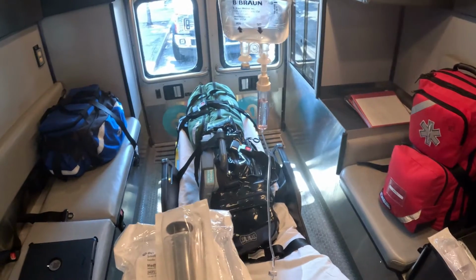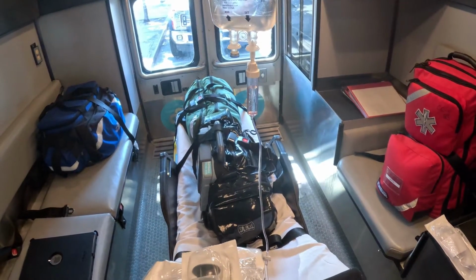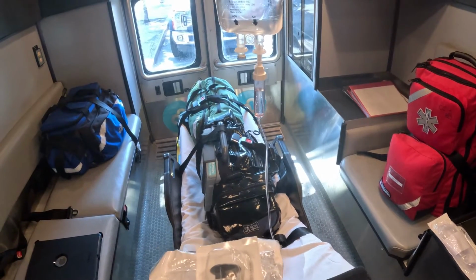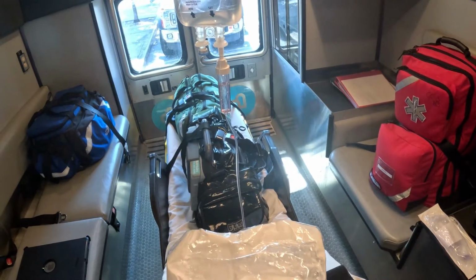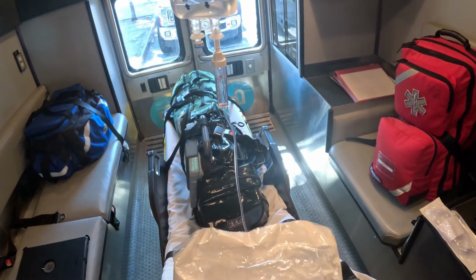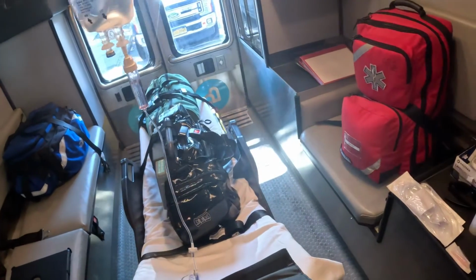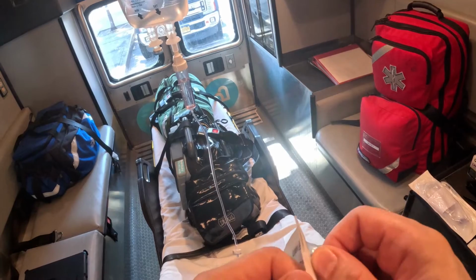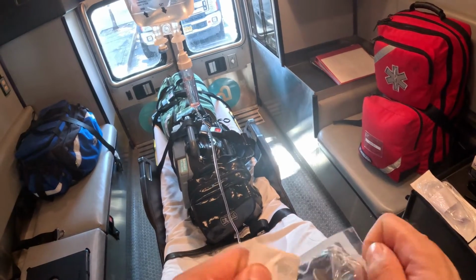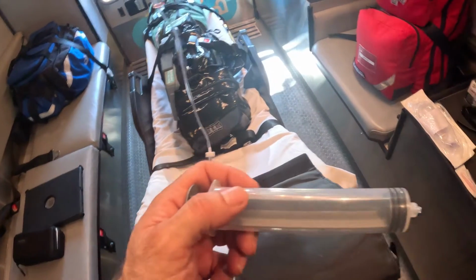I basically disconnect the central line from what I was running, and I connect my drugs to it. So how would you go about doing it? I'm not wearing gloves because I'm using my phone and I need that to be available to show you stuff, but definitely use gloves to do this. So what you're going to do is open your syringe, and we said we're going to be making a label, so I'll show you how to make the label.